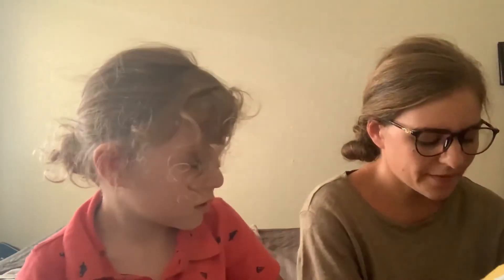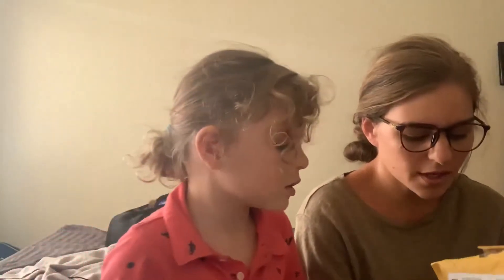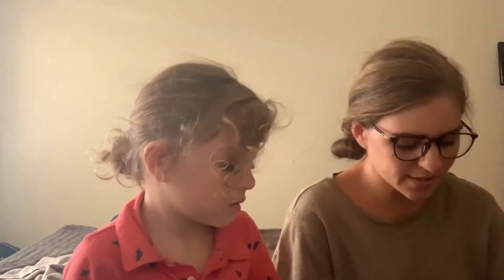These glasses also got anti-glare, anti-scratch, and transition sunglass coating. I am a very critical person so I do have some things to say about these glasses from Goggles for You, and I'll go ahead and make an update on that — so stay tuned for the updated video.